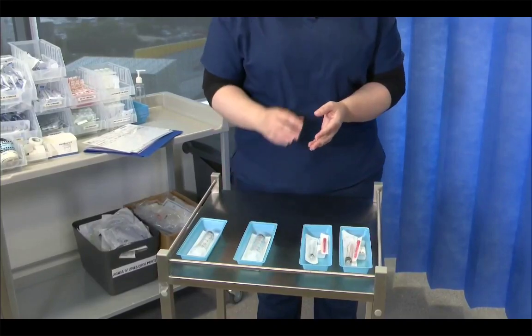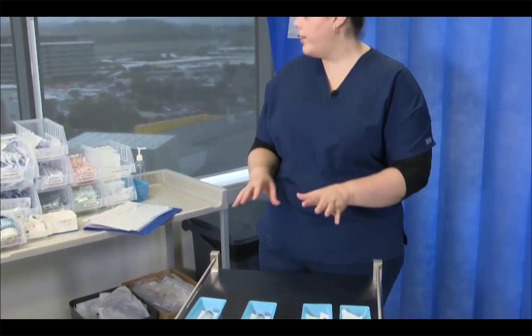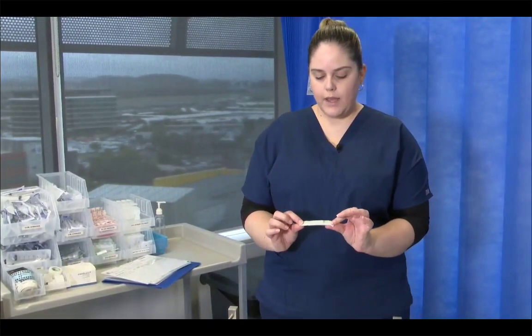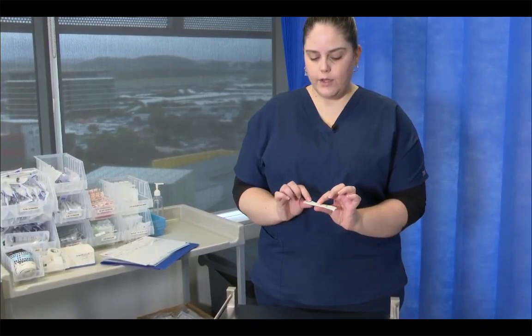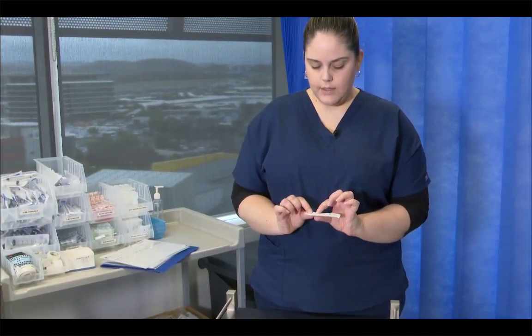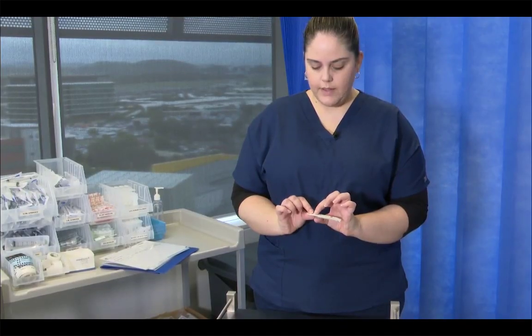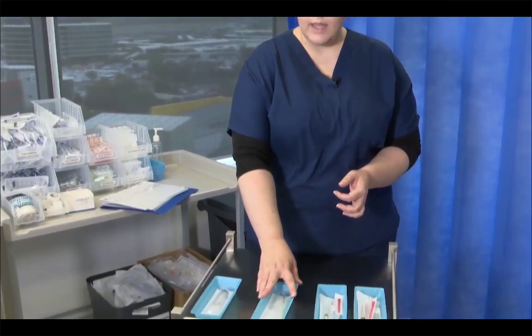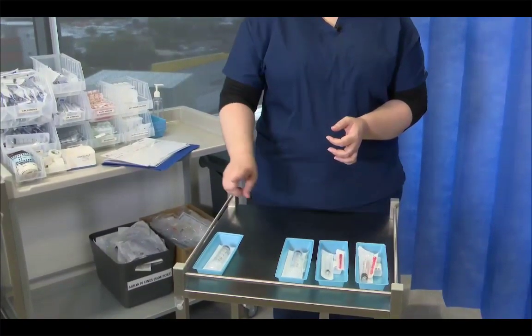So one of these, as I said, is for fluid coming out, so that's only going to be used for fluid coming out of the bag. So I only require a green needle because it has to be a sharp needle to pierce the bag to avoid the issue of microplastics. So again, I'm going to check the expiry date on this, and this expires in 2025, and I'm going to place my green needle in there, and that's all I require for that.